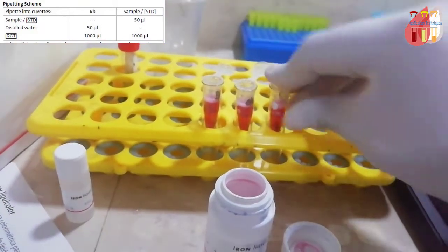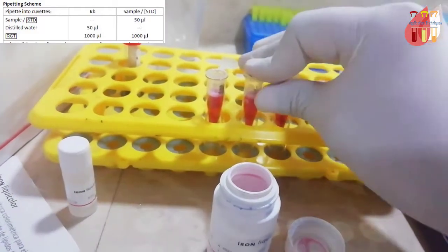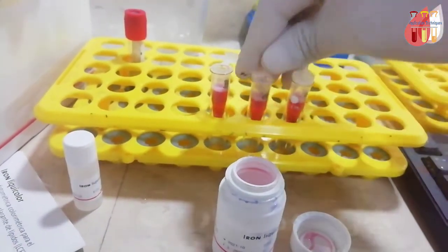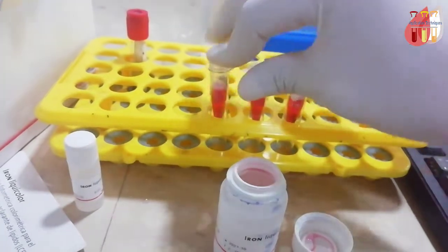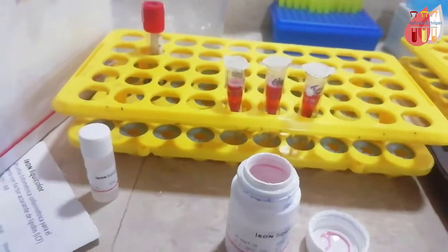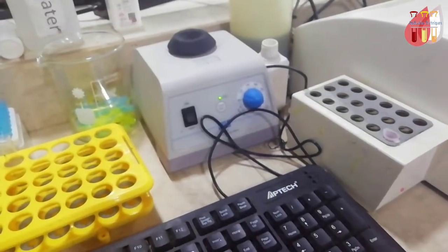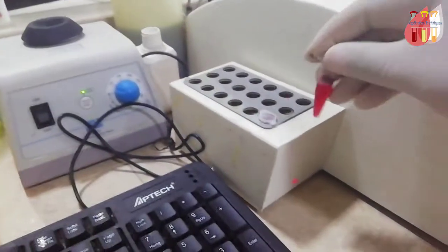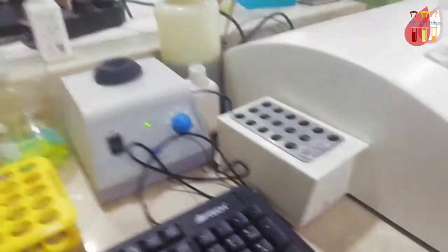Take 1ml of reagent, add one drop, cap it, and incubate at 37 degrees for 10 minutes. You can use sample, standard, or just reagent. I'm preparing the reagent now.